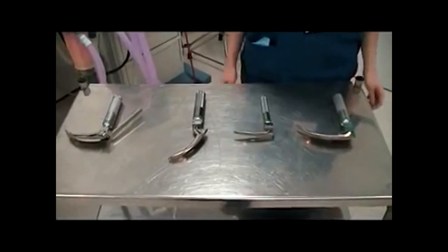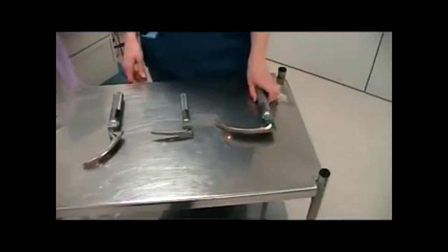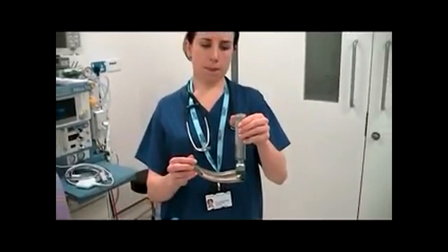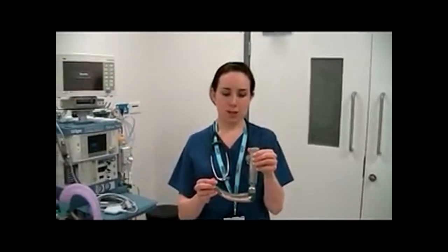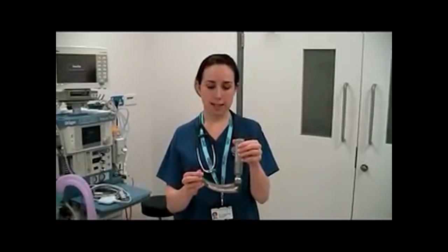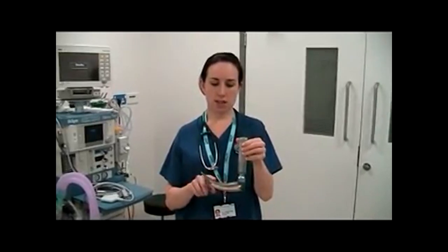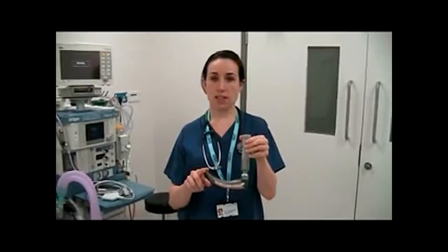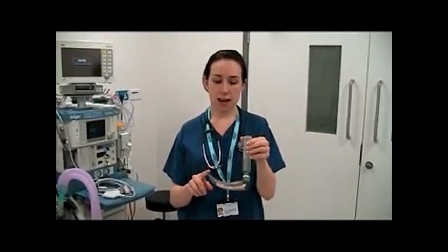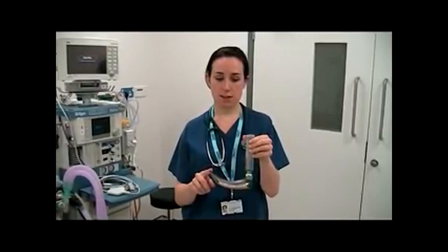What is the difference and how are they used? The first blade is the Macintosh blade. It's the standard adult intubating blade in the UK. It has a large curved blade which is inserted into the vallecula, and this is used to lift the epiglottis out of the way.